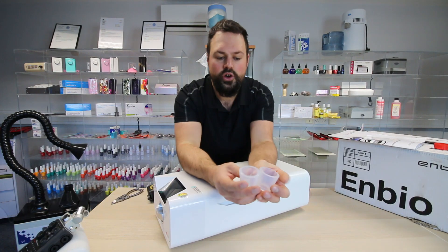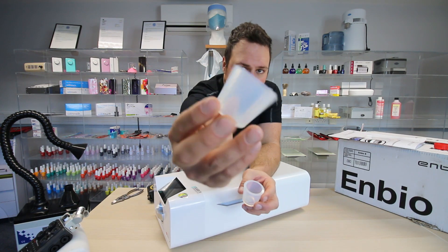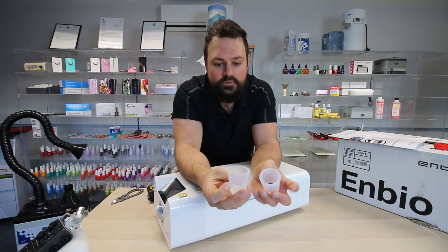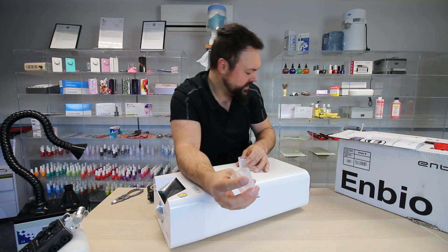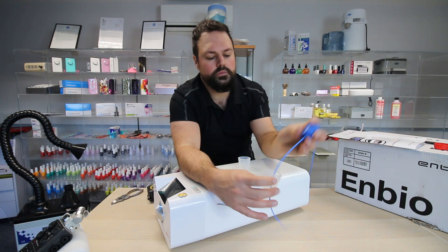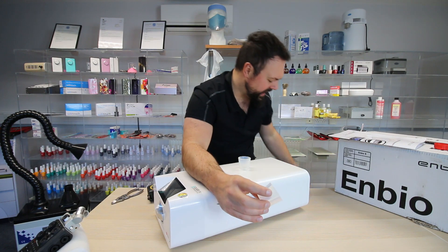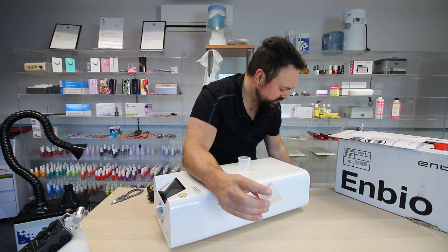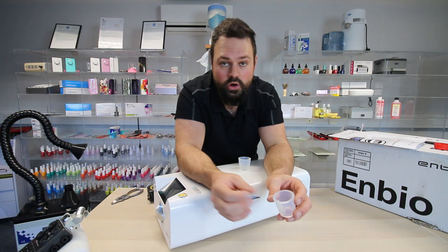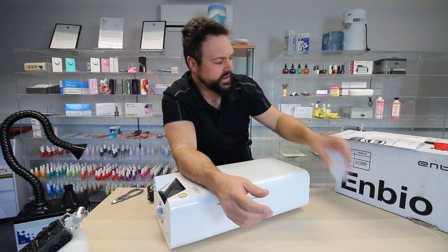Other things to note: if you can't get the right bottles, they've got these very useful bottle adapters. These will fit in a bigger bottle or a larger jerry can, for the adapters to sit inside. It means you're not tied to a certain size of jerry can — you can go bigger. Unfortunately you can't go smaller, as you risk the water not being picked up or output correctly. Those are the two adapters that come with it.